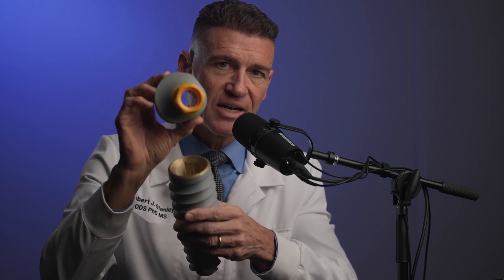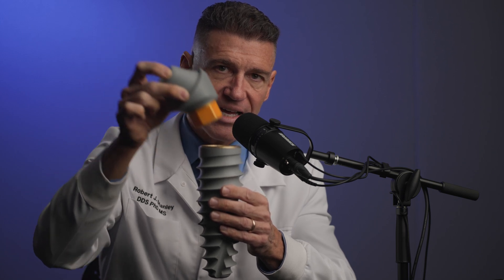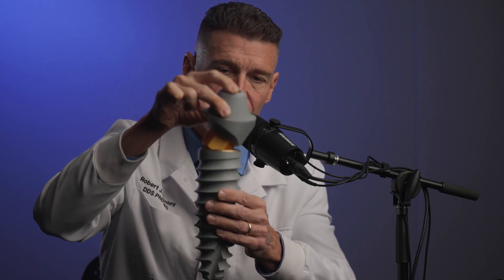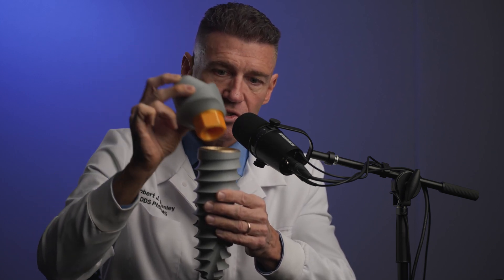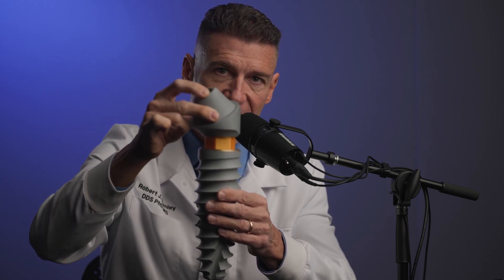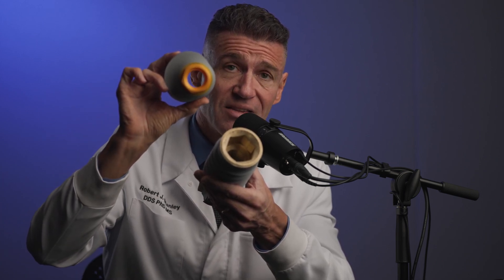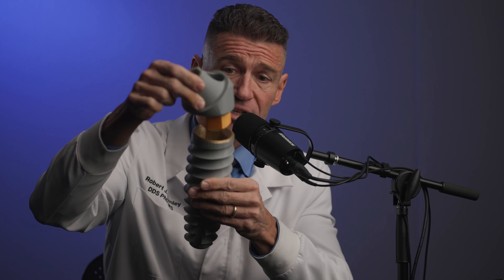Here's a shallow conical seal implant, and here is an angled multi-unit with a hex on it. In order to insert this, I cannot be off axis — I cannot get this to go in no matter what I do. This will never go into this hole unless I have a perfect line of insertion, a path of draw. It has to be perfect. In addition, the internal hex of this and the external hex on the abutment have to be timed right too.